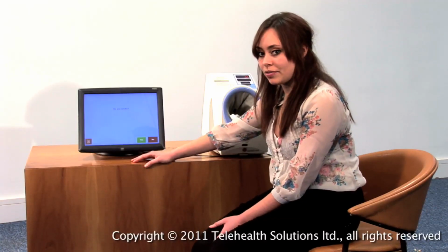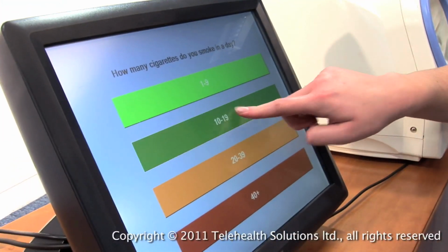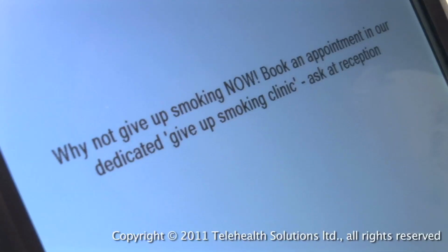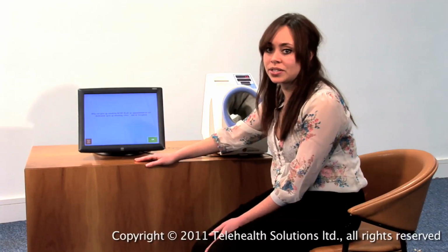It then asks me if I smoke. So if I press yes, it will then ask you how many cigarettes you have in a day. It will then come up with a message encouraging me to give up smoking and book an appointment to discuss it. This message is read-coded into the patient management system for the clinicians to see.